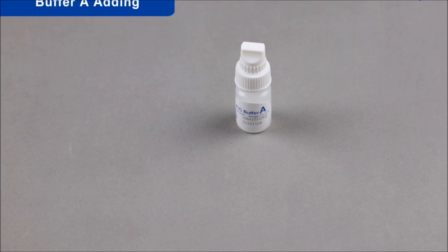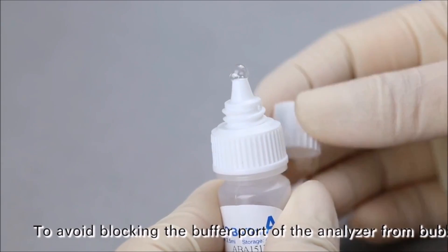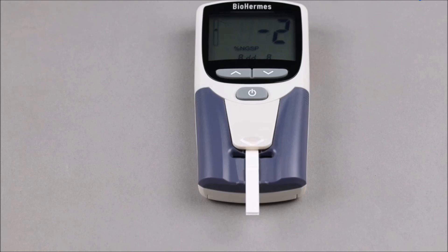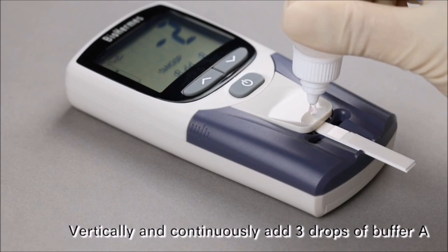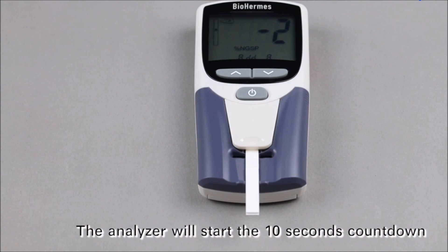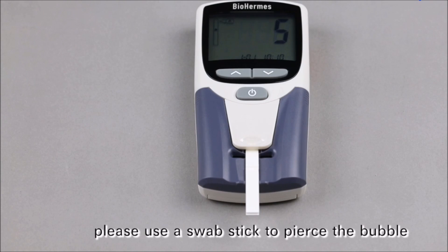Buffer A Adding: Unscrew the upper cap of buffer vial to open it. To avoid blocking the buffer port of the analyzer from bubbles, squeeze the bubbles out and then wipe them with the cap. Please add 3 drops of buffer A vertically and continuously to the buffer port. After the voice prompt, the analyzer will start the 10-second countdown. If a bubble blocks the buffer port, please use a swab stick to pierce the bubble.